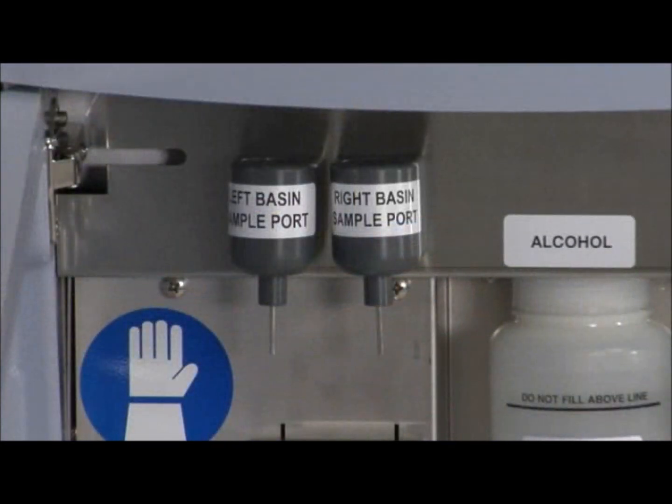Inside the machine are two sample ports, one for each side. The sample port dispenses high-level disinfectant for concentration testing with a test strip at the end of the cycle.